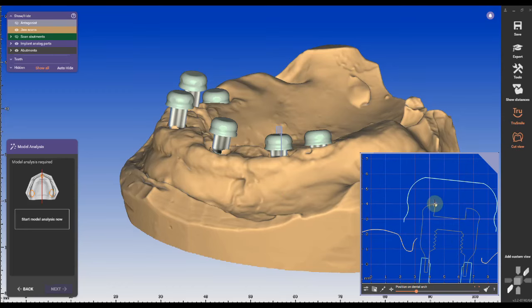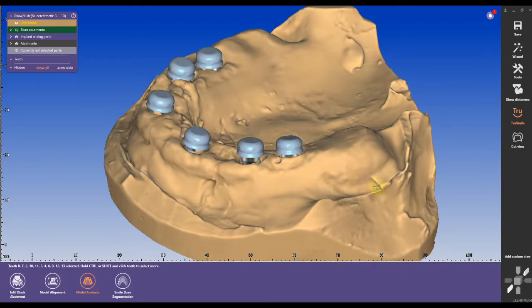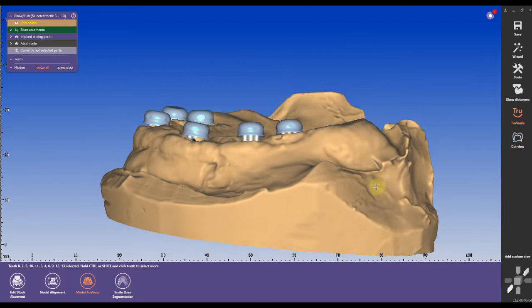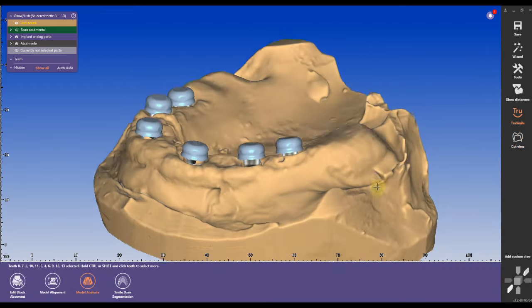Locator height is determined by tissue depth. The cuff height of the locator represents the tissue height while 1.5mm is added to the locators so it sits right above the tissue.